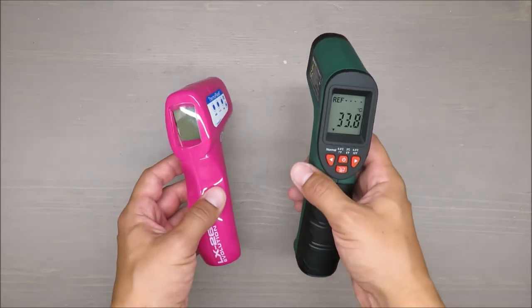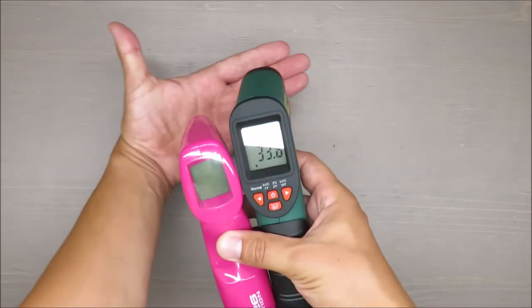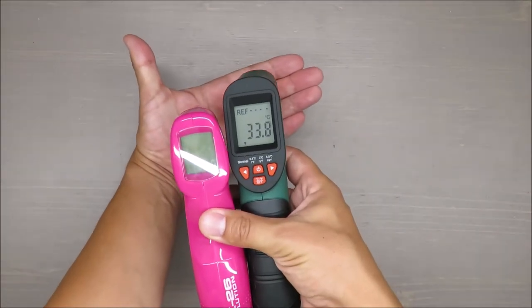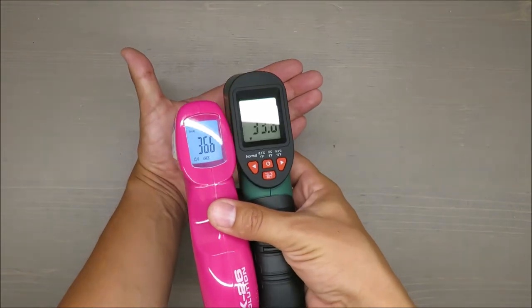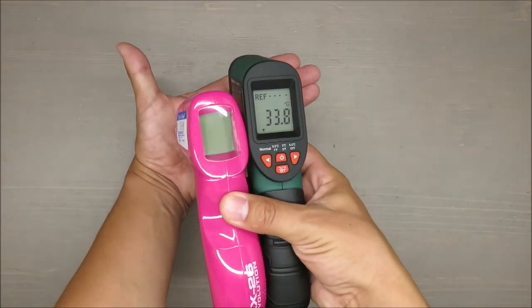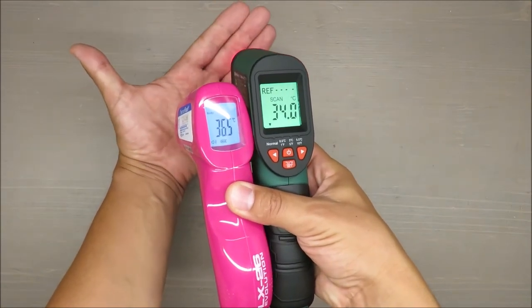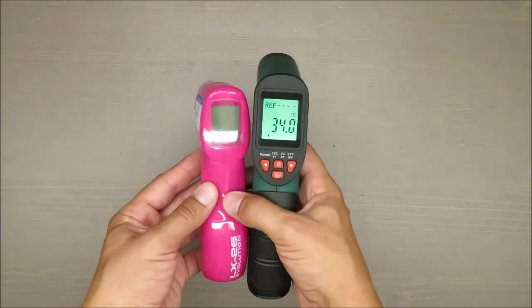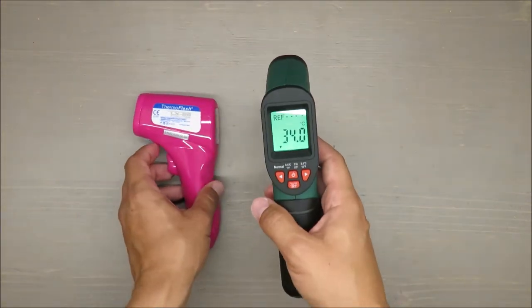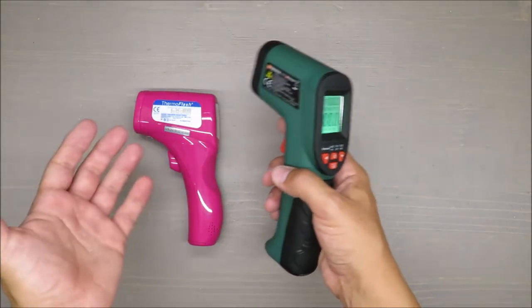Actually, if I compare it right now straight away, it's almost spot on. But I would say it's a little bit too much to count on it, because from 37 up to 40, it's from light fever or no fever at all up to very heavy condition.